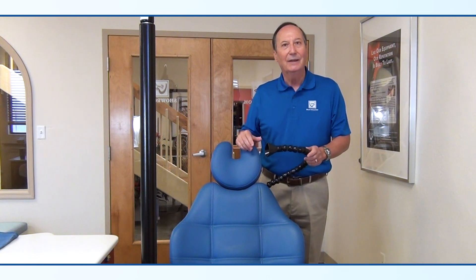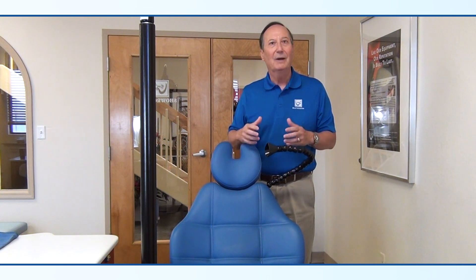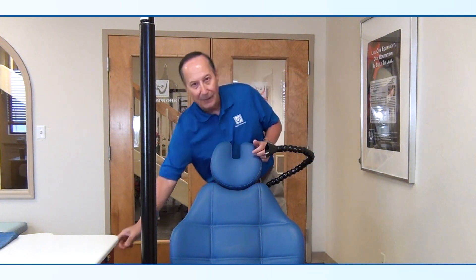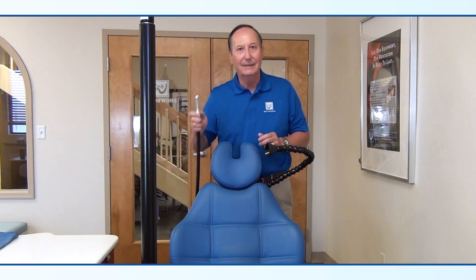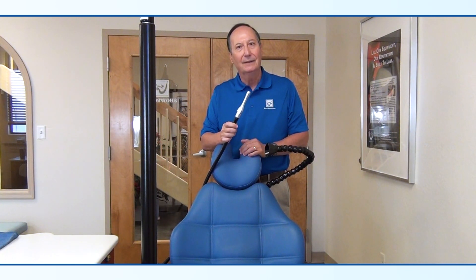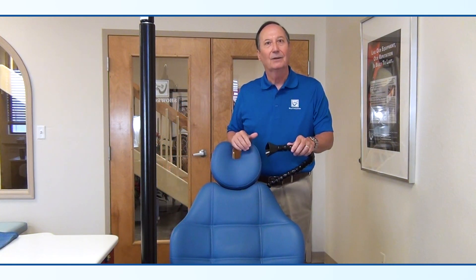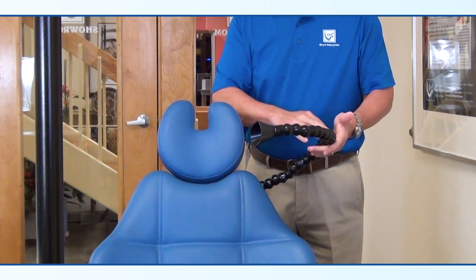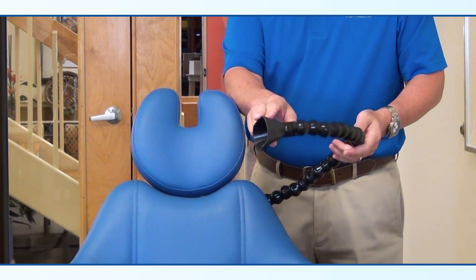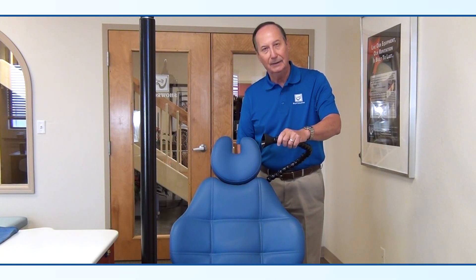The ADA requires that you use high-velocity evacuation to minimize the amount of aerosols that are produced or spread around the office. Boyd's latest innovation is a hands-free aerosol collector. This hands-free aerosol collector uses a 27-inch gooseneck mounted to the back of the chair, and it can be positioned in any way for your patient.